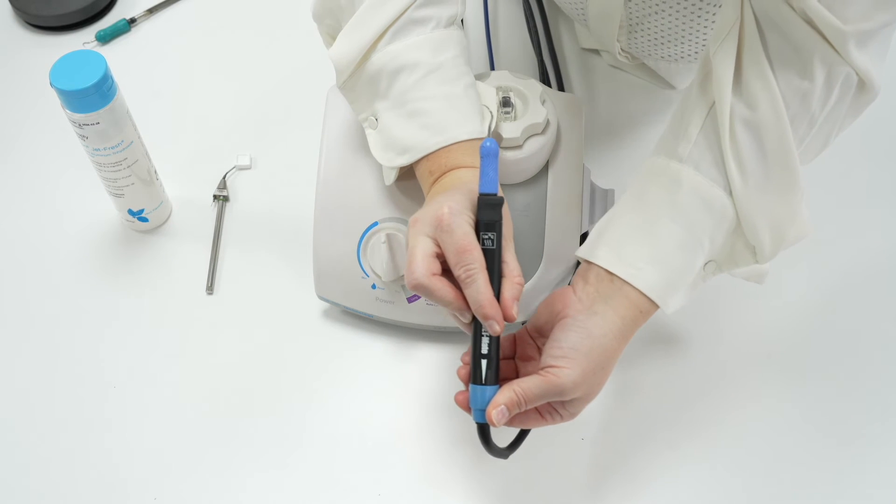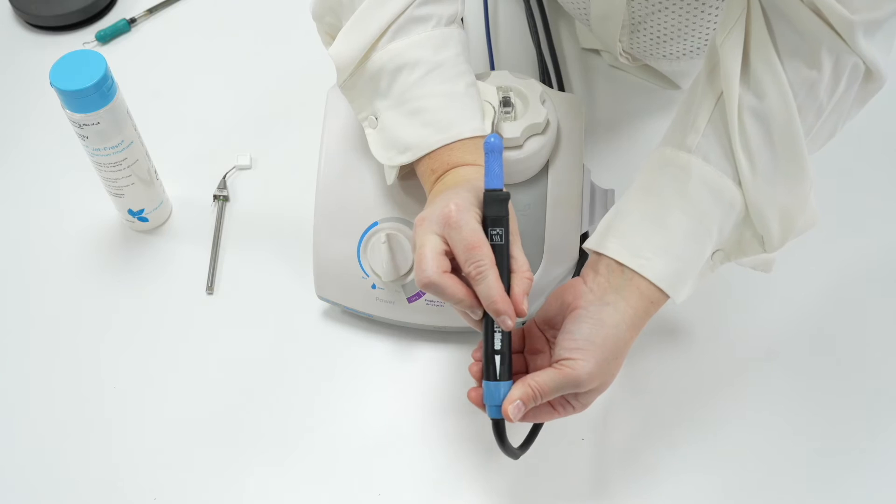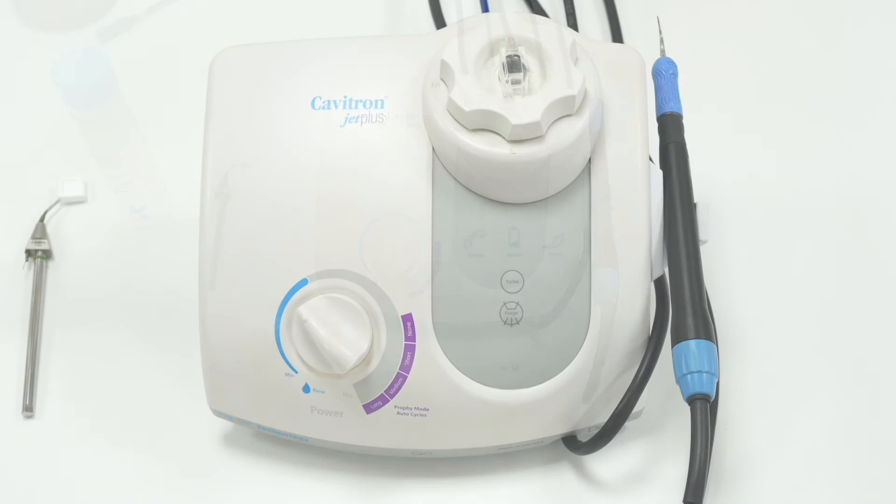If an insert or JetMate starts to heat up, stop scaling immediately. Remove the insert and make sure that the JetMate is full up with water. Replace the insert and turn the power down.